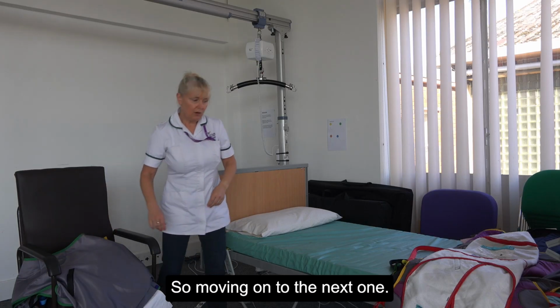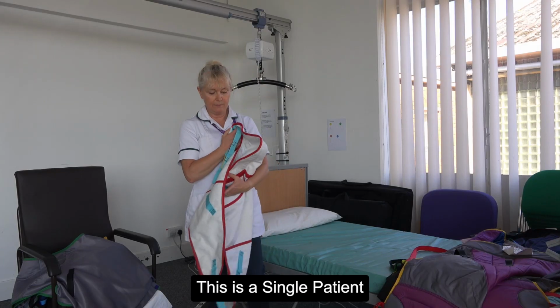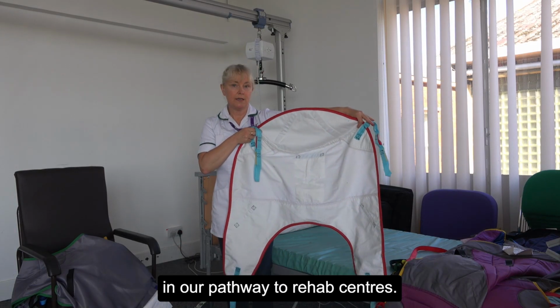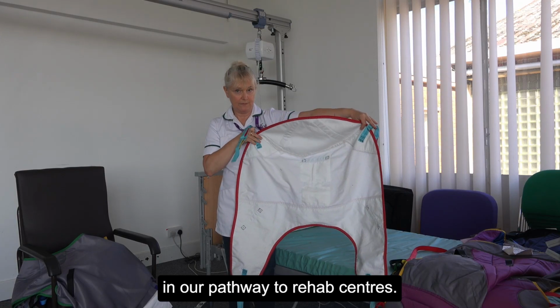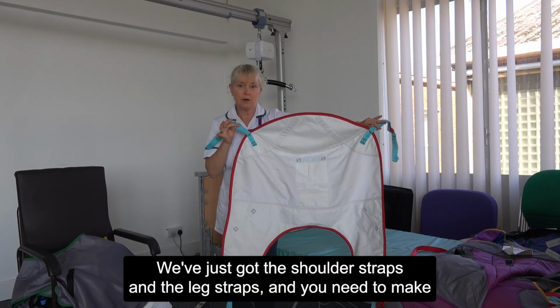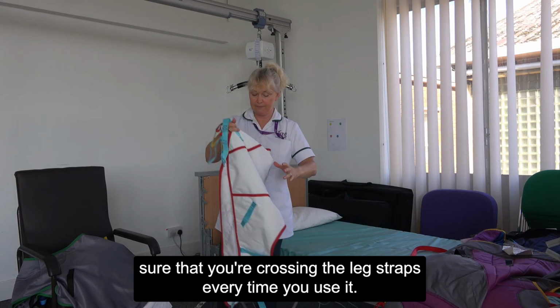So moving on to the next one, this is a single patient use sling. These types of slings are ones that you might find in our pathway to rehab centres. Same shape as the quick fit, we've just got the shoulder straps and the leg straps, and you need to make sure that you're crossing the leg straps every time you use it.